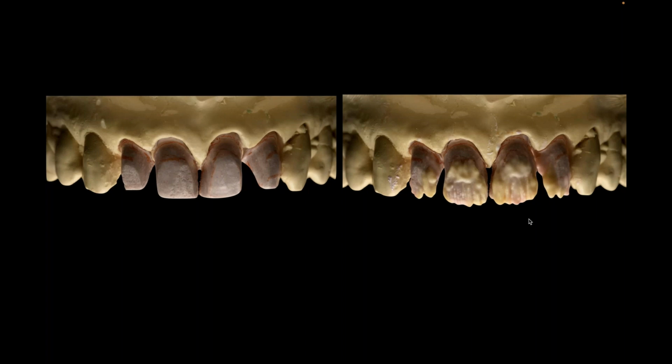Now, in the title, just to be clear, Jim also asked for foil. I have to be honest and tell you, I very, very rarely foil. There is nothing wrong with foil. It's a good technique. It's actually probably one of the smarter business techniques, right? Because you buy the foil and then down the road you can repurpose it for scrap and utilize it again. So it's actually a great process.